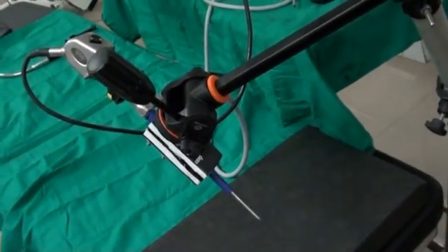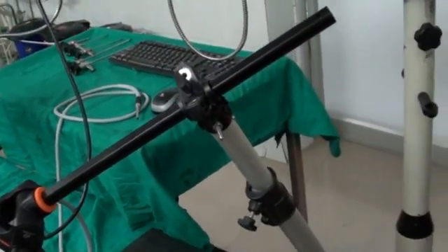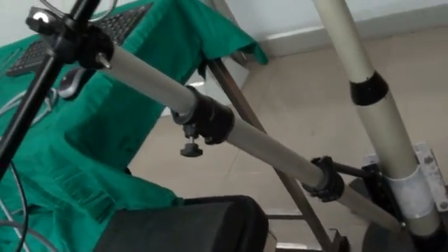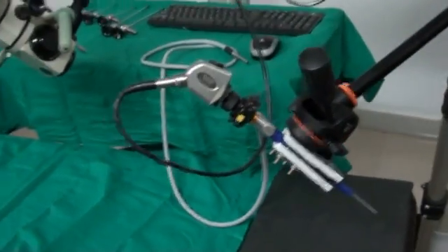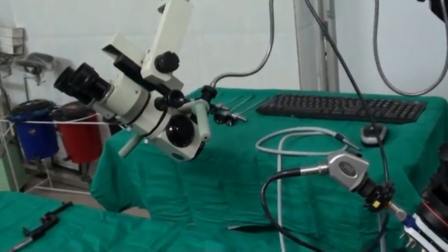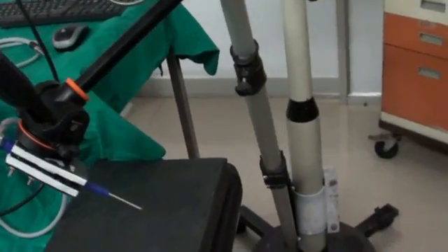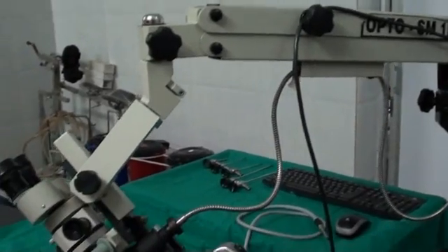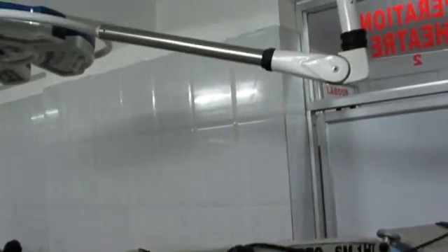This is one of the most perfect and simple endoscope assemblies, which can be mounted directly to any microscope stand. And apart from mounting this assembly on the stand of the microscope, you can directly put this assembly on the lights.